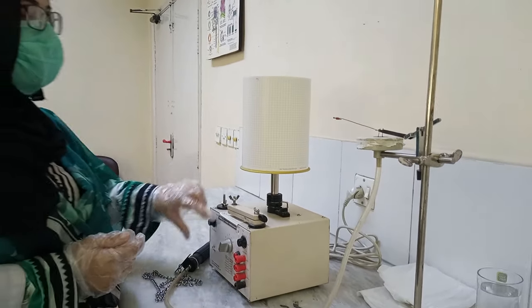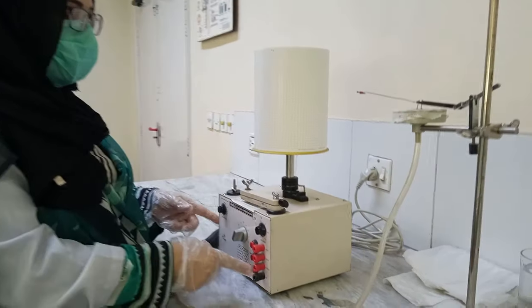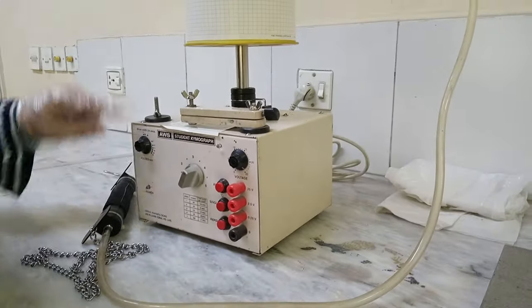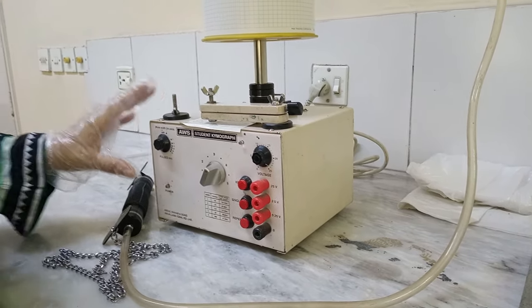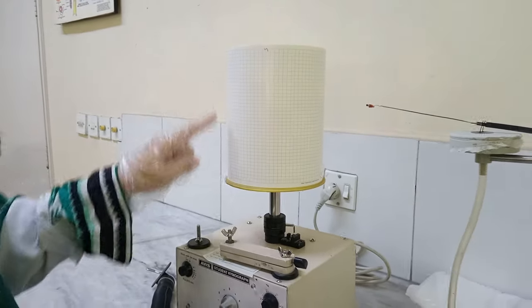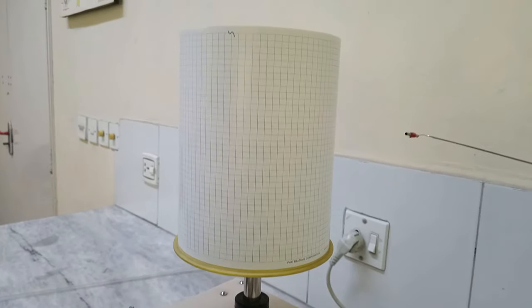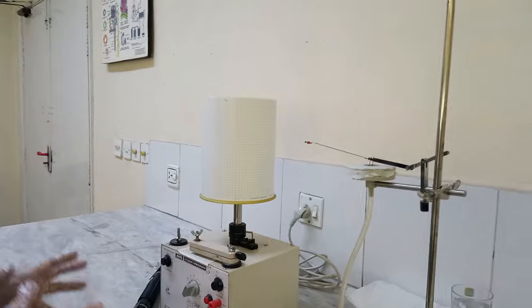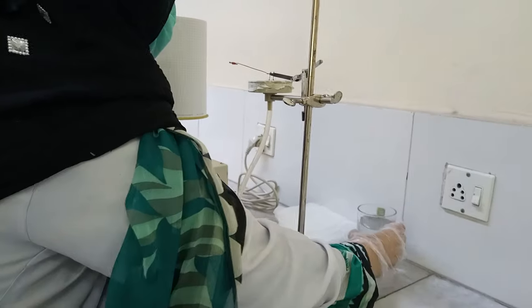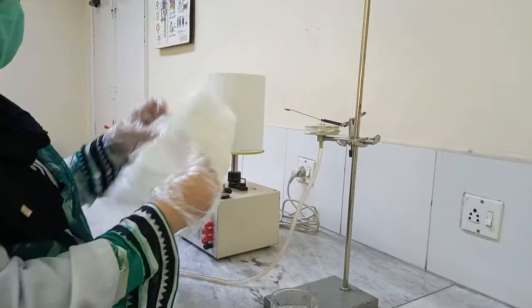The kymograph can rotate at different speeds. There is a baseline speed control, and the practical speed used here is 3. This is the drum on which you place the graph paper. Each square on the graph paper represents a timing of 2.5 seconds. For this procedure you also need a glass of water, a paper bag, and if available, a polythene bag. Now let's go to the steps.